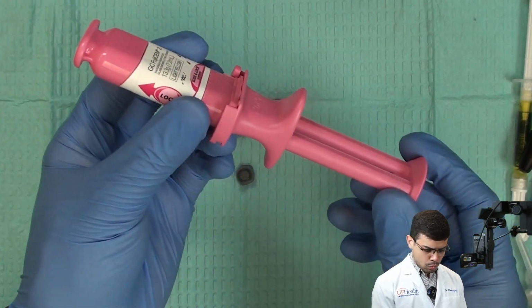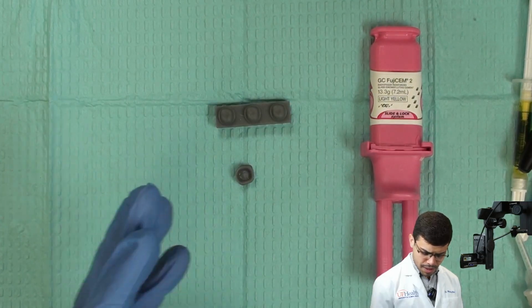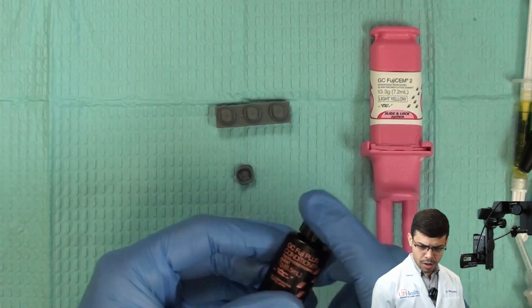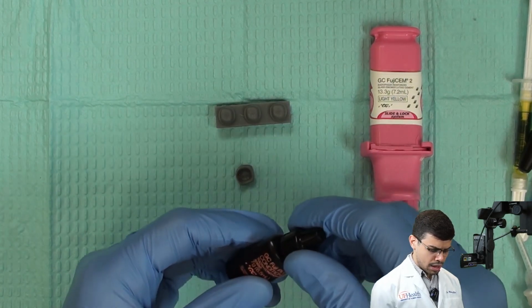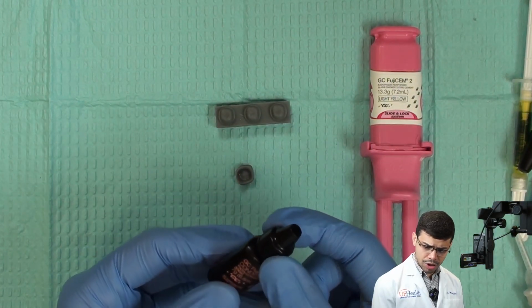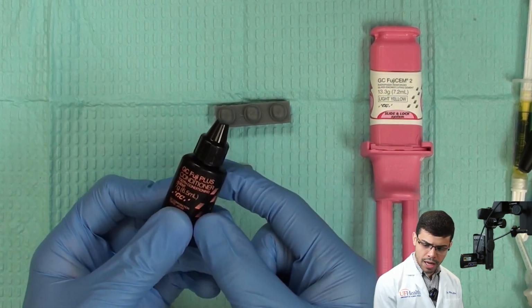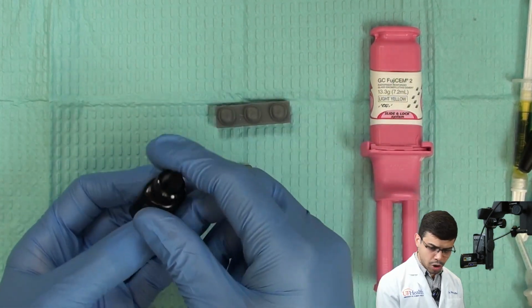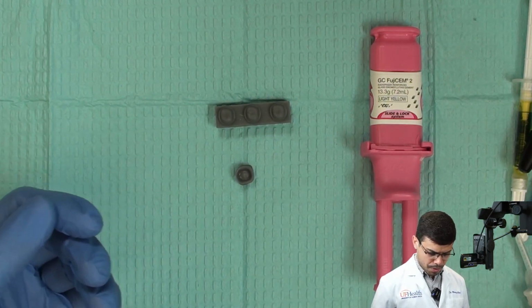All right, so for this one, what I would need to do is think about that glass ionomer-based cements go with cavity conditioner. You're not gonna have cavity conditioner on your station because this cement does not require cavity conditioner, but in the clinics, remember, you're gonna start with the cavity conditioner on the tooth, getting ready for Fuji Plus. Since we're not gonna have this today, we're gonna skip that part.